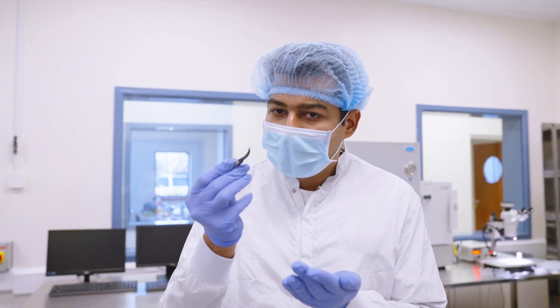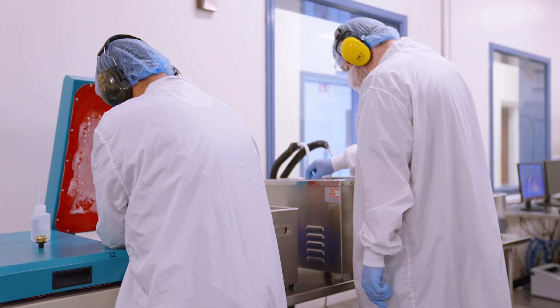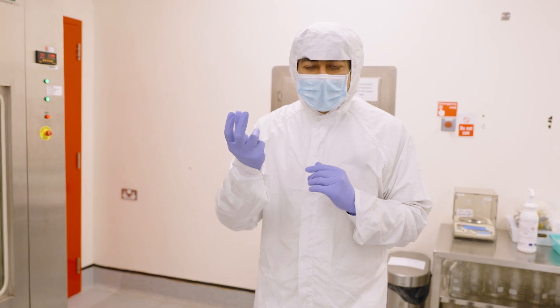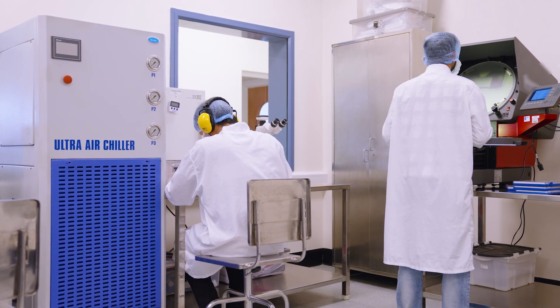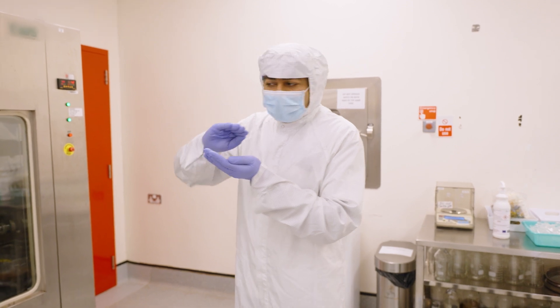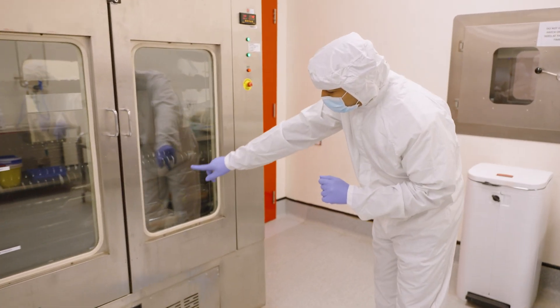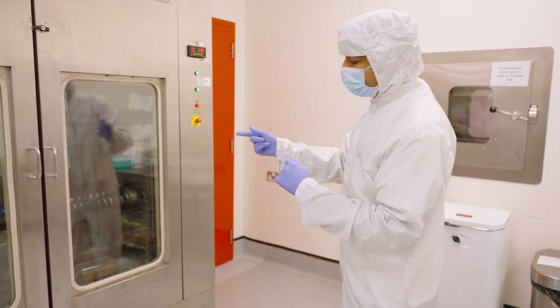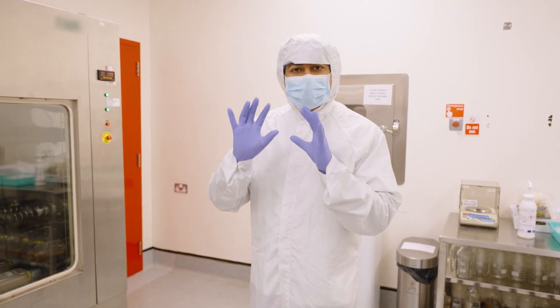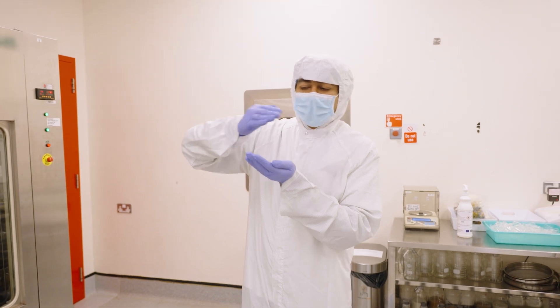But the process is not finished yet. The next step after this is called polishing. In polishing, what we basically do is take the final lens that was cut out through the milling process, and polish it to smoothen out its surface. In this machine, the polishing process is carried out. If you look carefully, there are some bottles rotating. What is done is that some beads are put inside these bottles, and the lenses are mixed with those beads. Then for four days these bottles are rotated, and through the friction process, the surface of the lens becomes smooth.